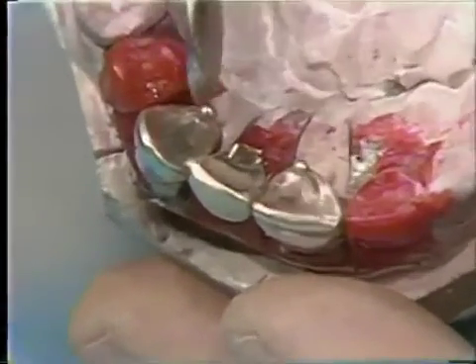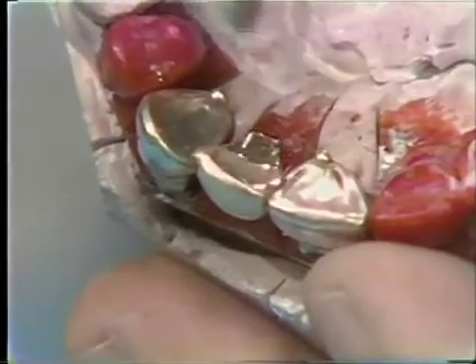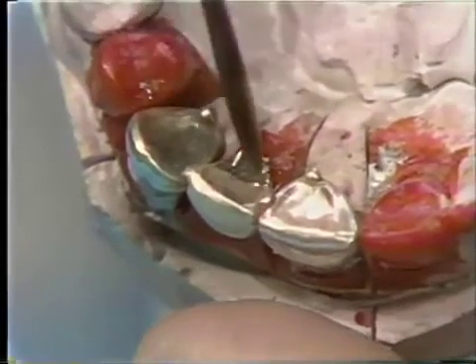You'll note the knock-off lugs and the position of the soldering lugs. The soldering lugs have been lubricated with flux.